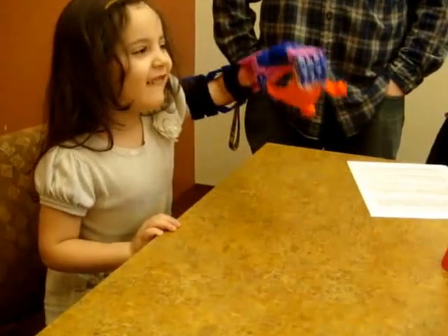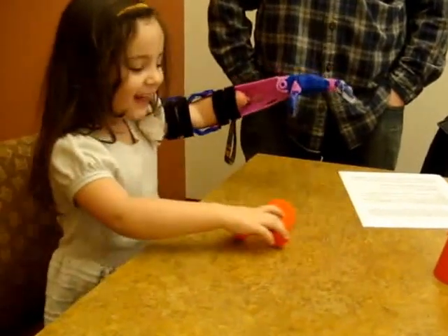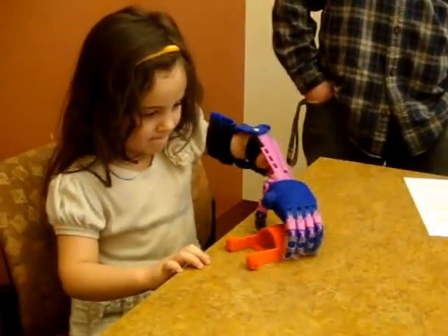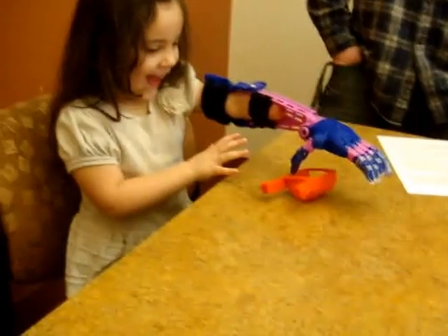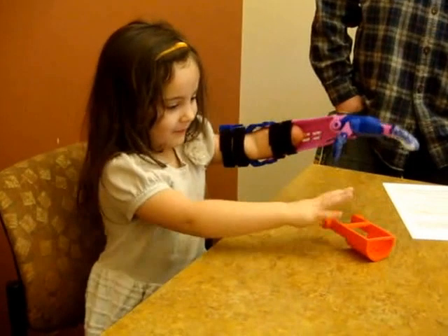Sarah has an arm and she picked it up. There you go. Good luck with that. Oh my goodness, my goodness. You've learned so much in the five minutes we've been here. This is crazy good.